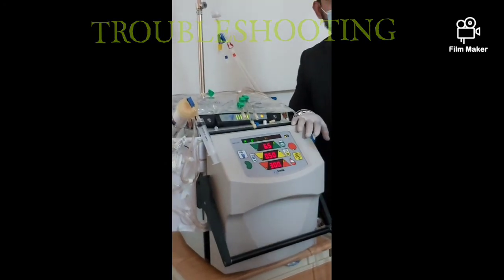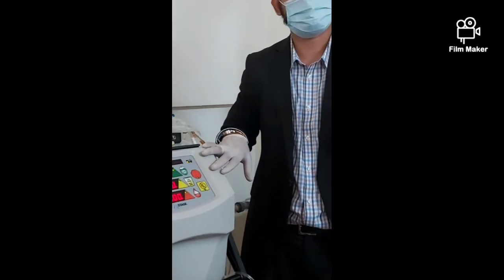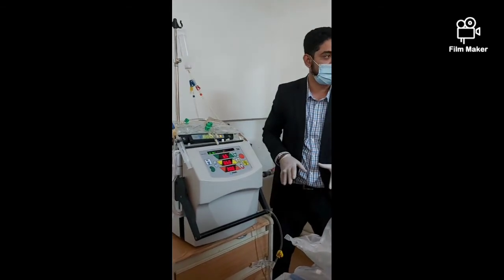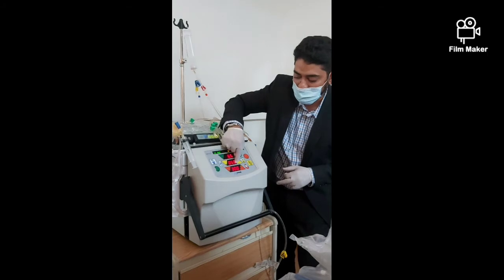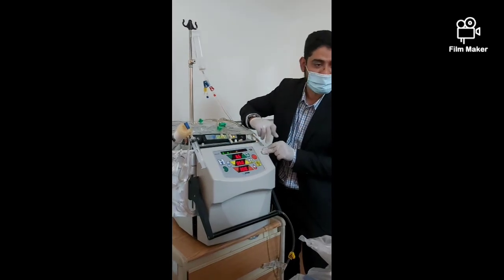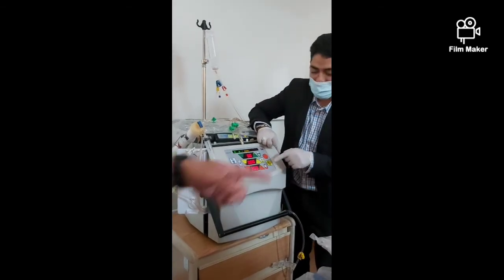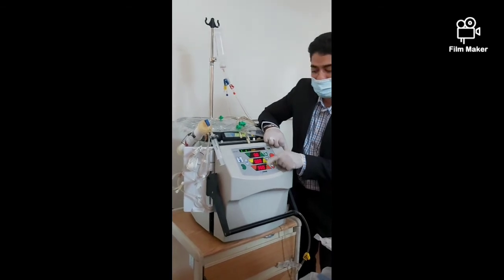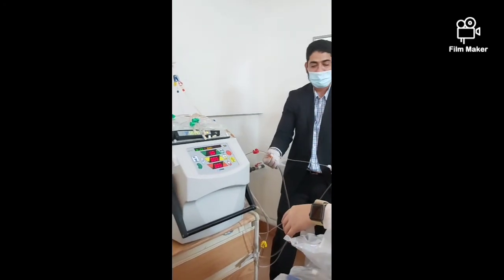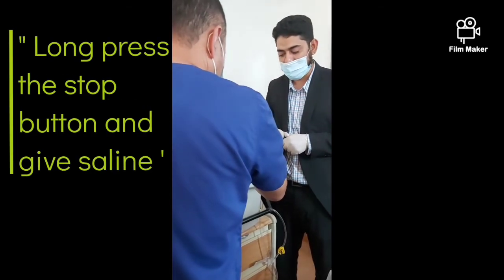To know if the pump is working, look for the three dots — dot dot dot means it is working. For hypotension interventions: put the bed down, stop the ultrafiltration, then give saline. If the patient is in hypotension and you need to quickly go to zero UF, do a long press on stop — long press and hold — and it becomes zero-zero immediately while the pump keeps running. Give saline. When the patient's BP is okay, long press to resume.